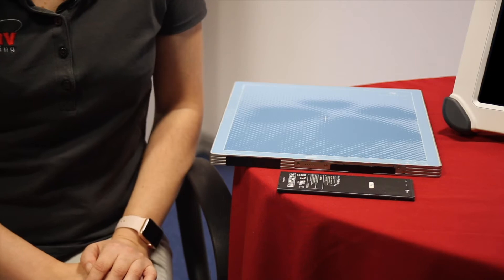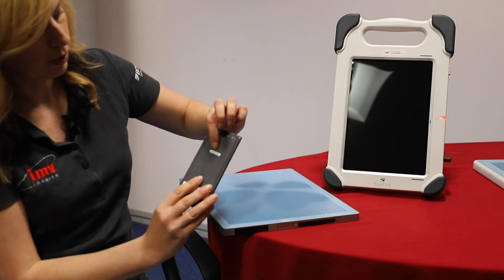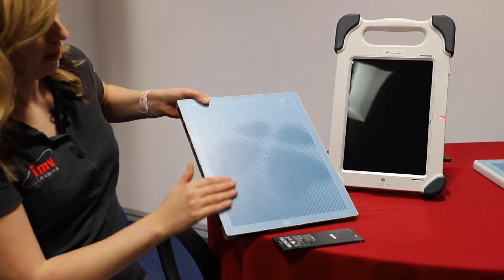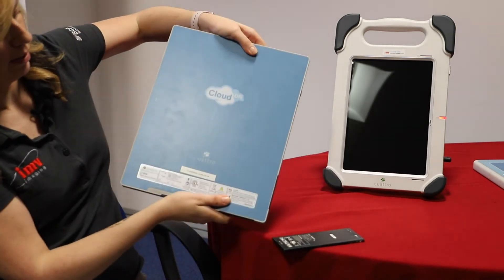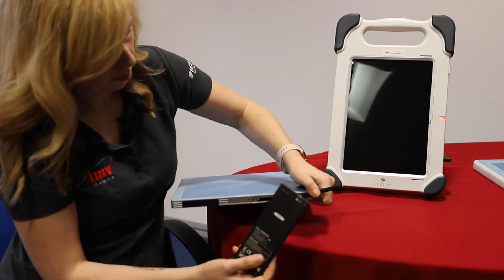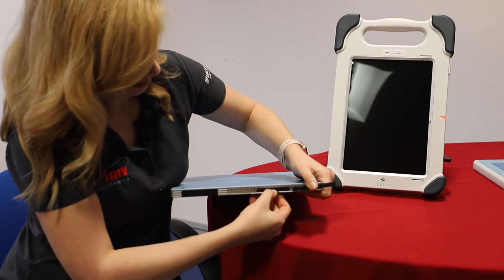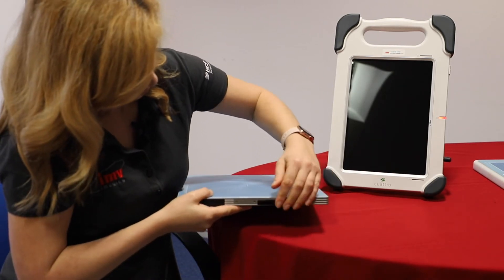The first thing to do is put the battery in the plate. The battery is labelled top and bottom. This is the top of the plate — the side you'll expose — and this is the bottom. The top of the battery corresponds to the top of the plate. Slide it in until it clicks and cover it over.